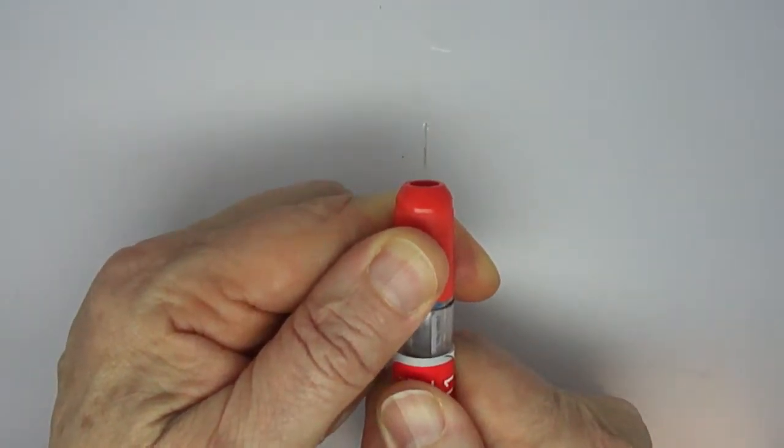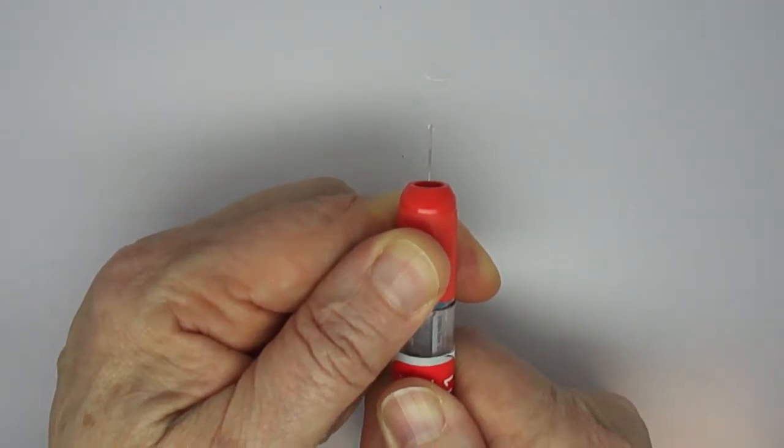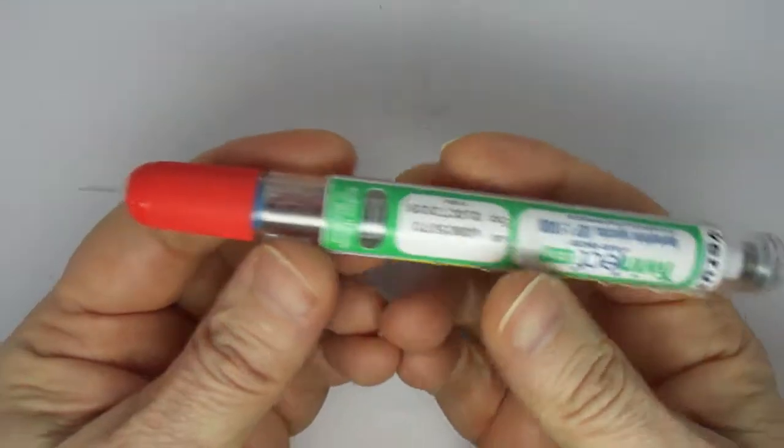Three, four, five, six, seven, eight, nine, ten. And the needle was exposed after use.